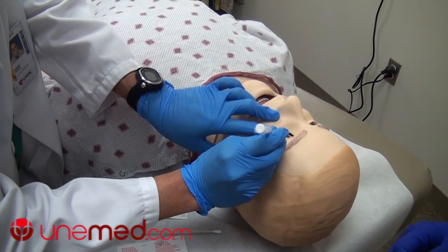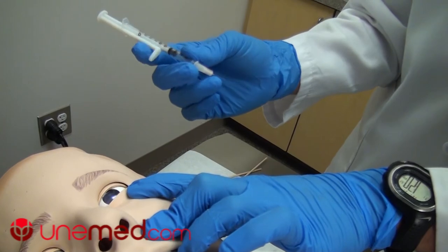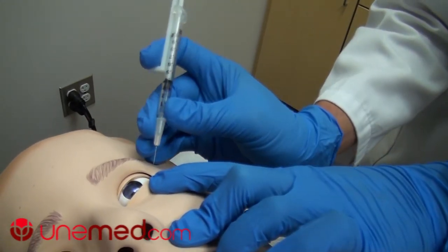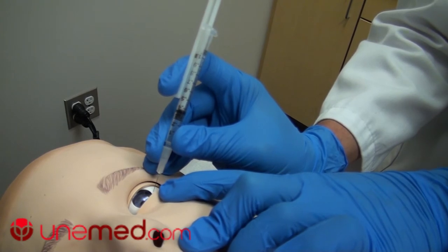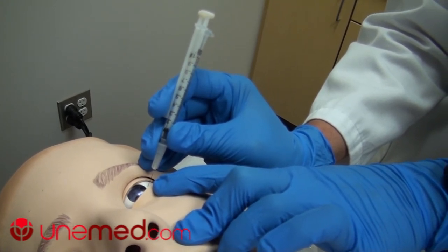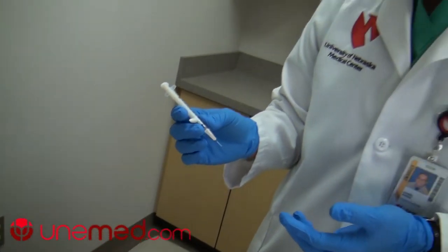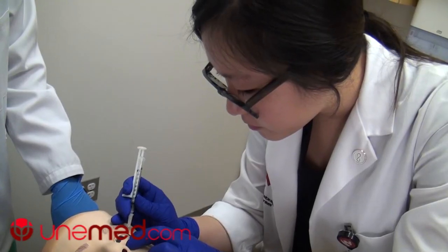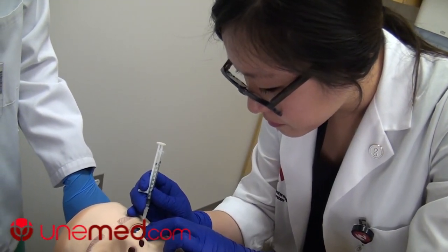That was the whole reason for this new plunger. Here, I would simply hold the syringe with my thumb and middle finger where the ring bevel is located, and I would place my index finger right on the knob. Then I could inject without any assistance in a very controlled fashion, because your fingers are all congregated in one small area where you can control the tremor and minimize the movement. I truly believe this would make what we do on a daily basis much safer and in a more precise way. So that's a lot easier.